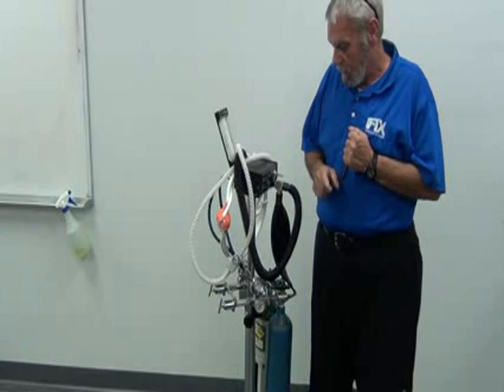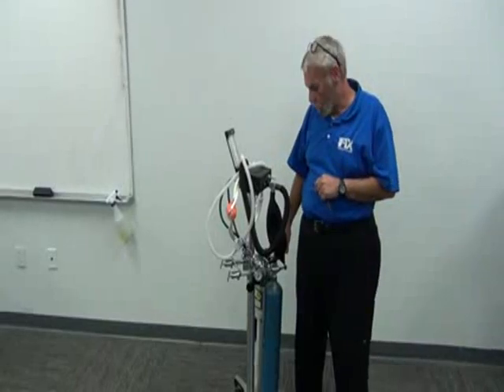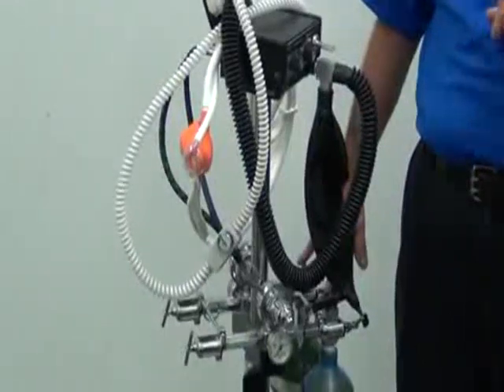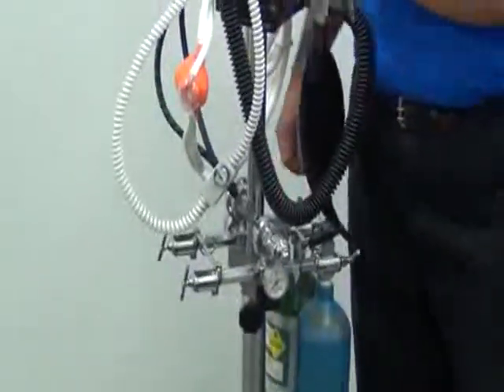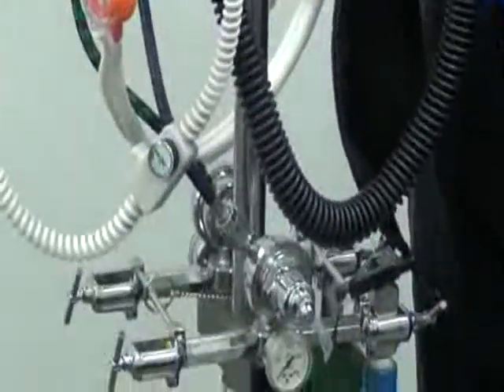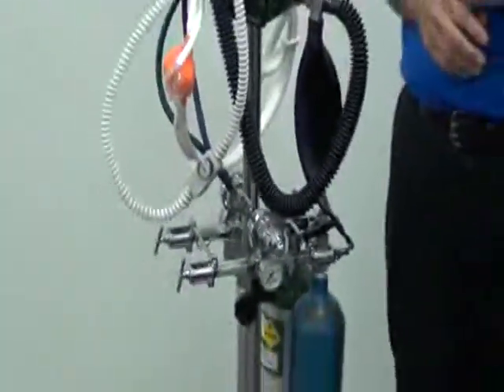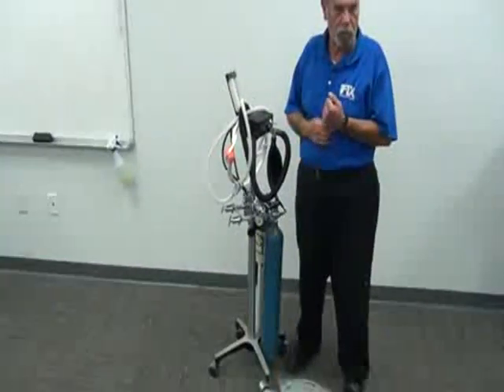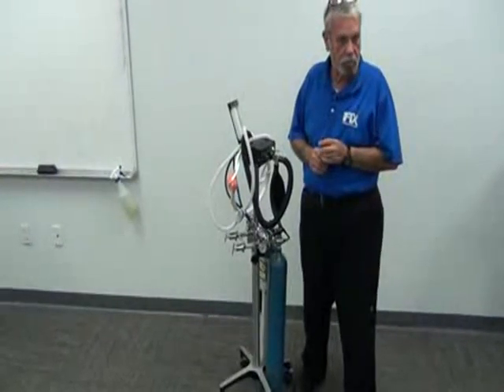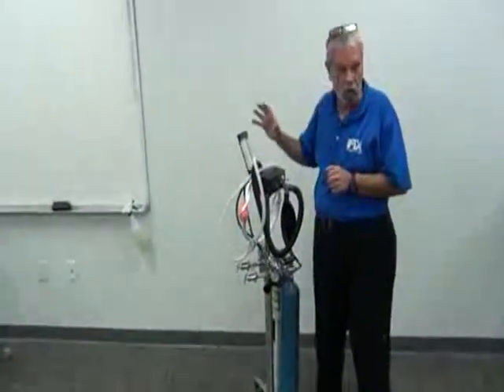Okay? Now, from our tank yoke, we have our tanks. The system can run on two tanks. One must be nitrous, one must be oxygen, because the flow meter has a default in it. If it doesn't sense the nitrous pressure coming from the nitrous fittings, and if it doesn't sense oxygen first, you'll have no nitrous function. It has to have oxygen in it first before you'll have the nitrous function. And it's a good thing because the doctor could hurt a patient. So you've got to have oxygen in conjunction with the nitrous to even make the machine come on.